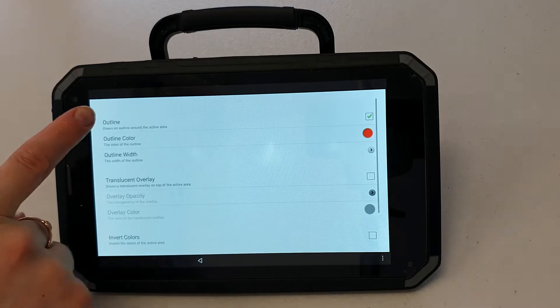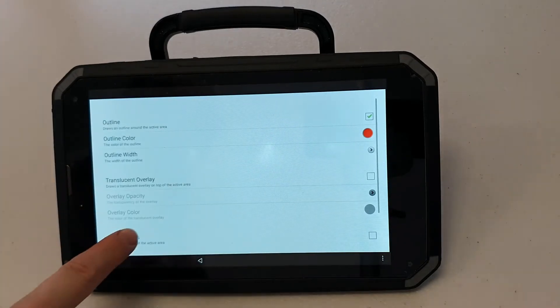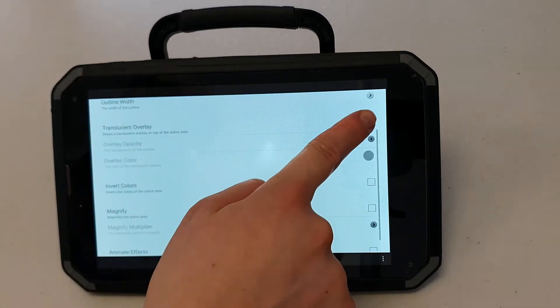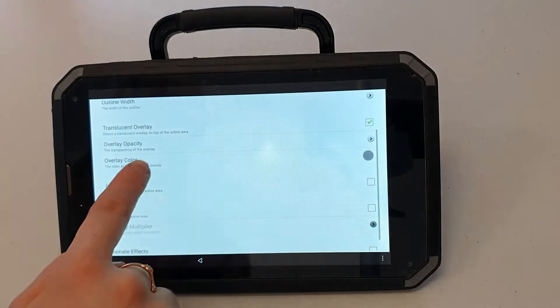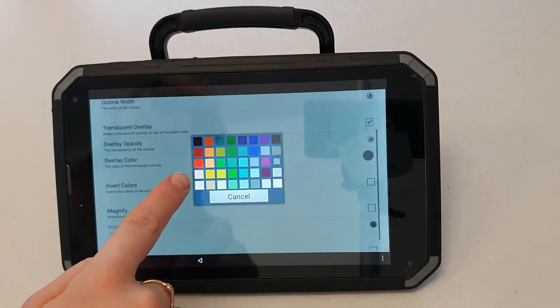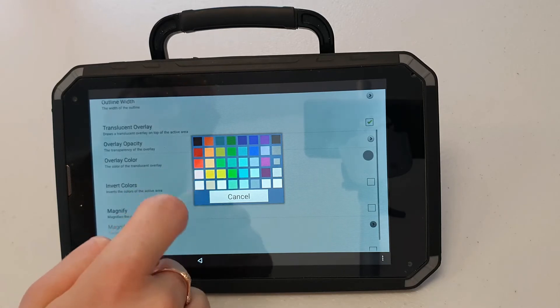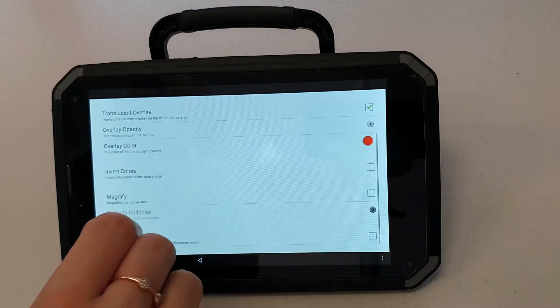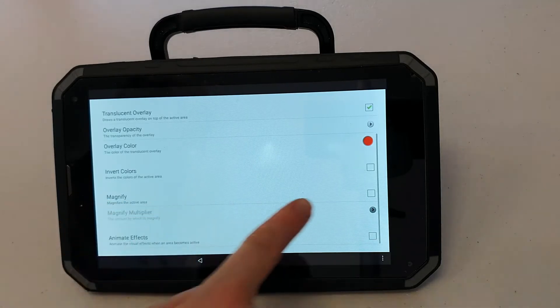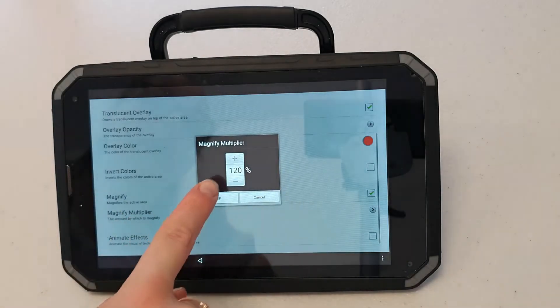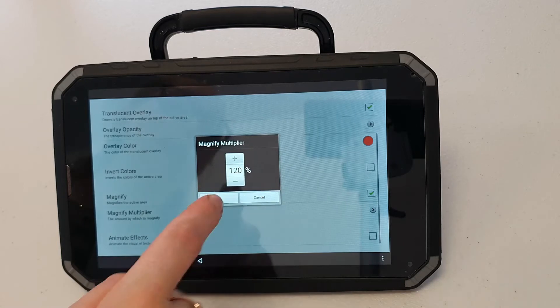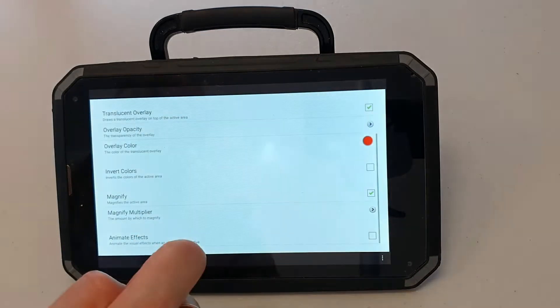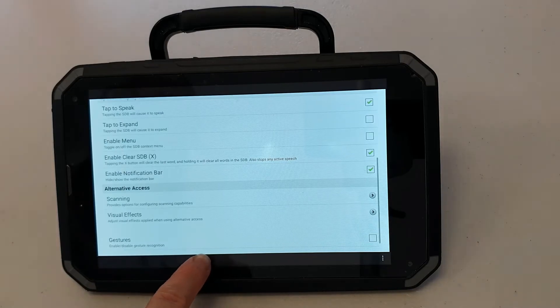Outline means that the button will have a red outline when I press it and that is enabled. I'm going to tick translucent overlay so that the button when I press it will turn any color I want. In this case I'm going to make it turn red. I can also make the button appear slightly larger when I press it by ticking magnify. We can see here the button will get 20% larger than what it normally is when I press it. That's okay. I'm going to go back from there and go back.